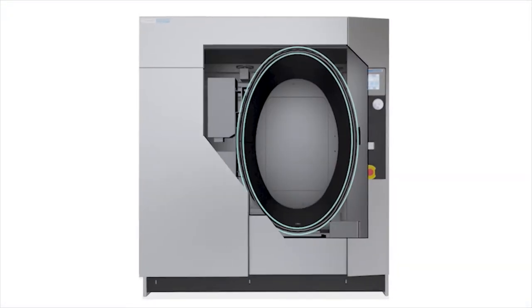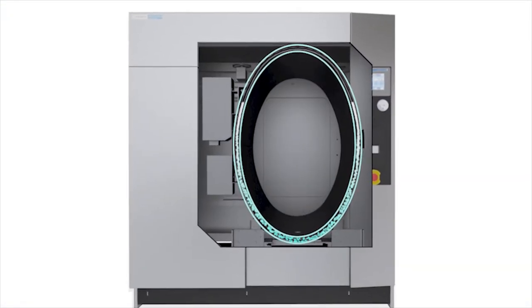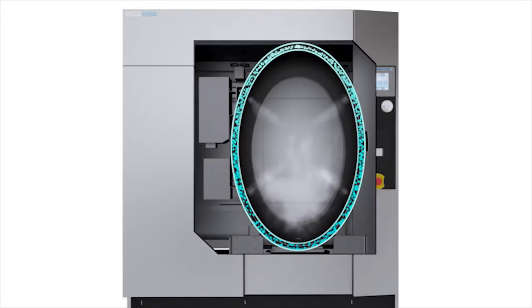The optional liquid air cool cycle provides water to the jacket and air pressure to the chamber during the exhaust phase for liquid loads, to reduce boiling and evaporation while saving time.